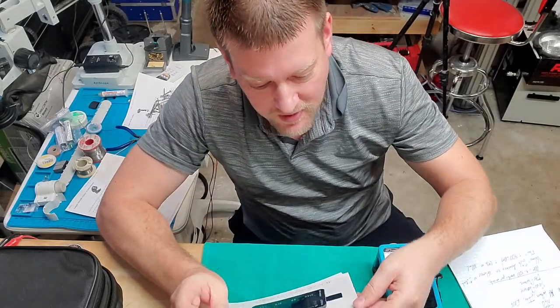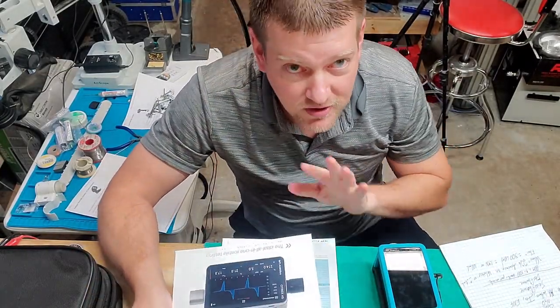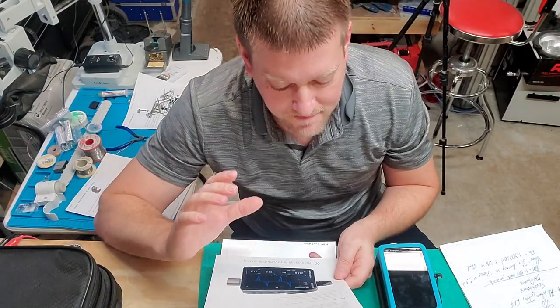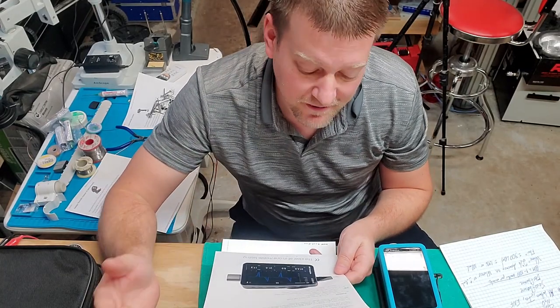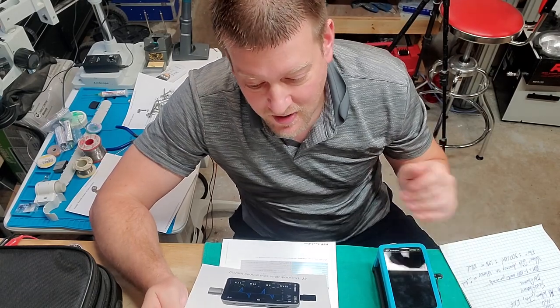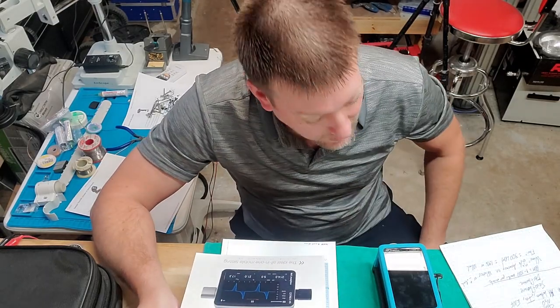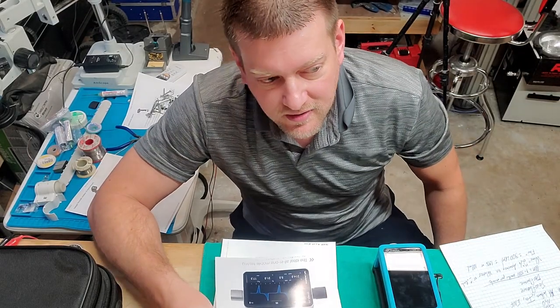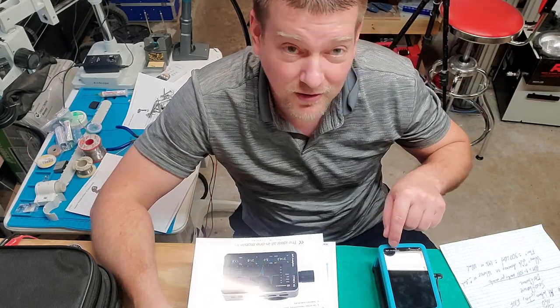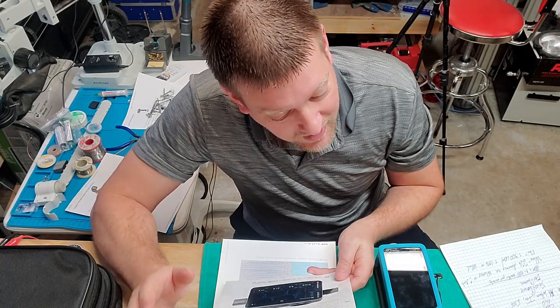I have the data sheet for this device and I'm not going to go over every single thing, just the areas that people had the most questions on. Right off the bat, the screen. It is a 4.3 inch multi-touch display just like your cell phone. It's 800 x 480 pixels. I'm actually kind of surprised about that because the resolution looks really high — you can see the numerics and waveforms in so much detail.